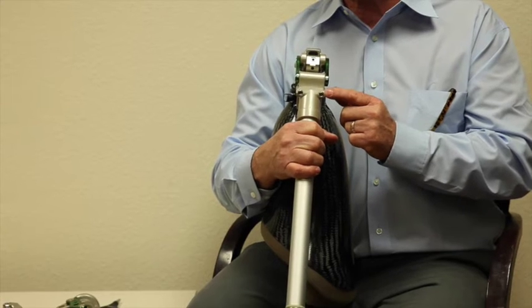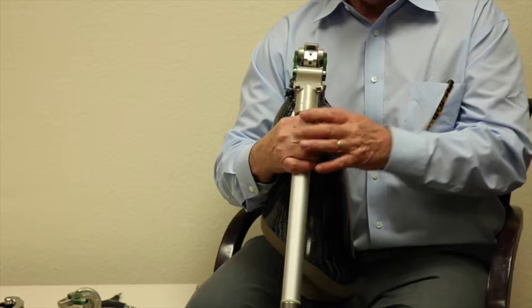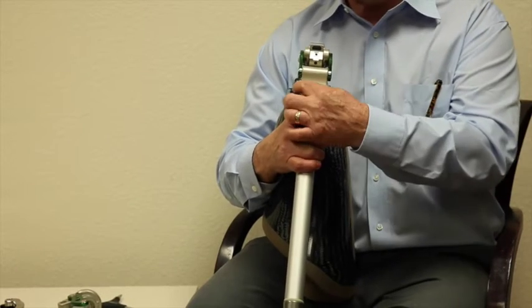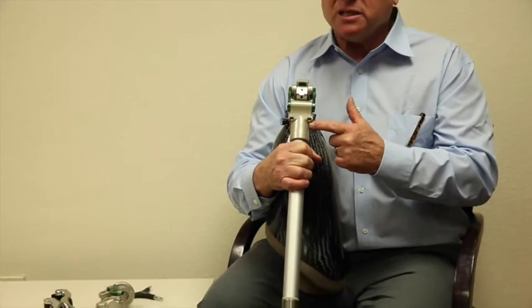What is vital is that you turn them exactly the same. If you turn one more than the other, you're going to get premature wear and you won't get the action you're looking for. So if you go an eighth of a turn, go an eighth of a turn on the other side. Keep track, stay focused, and adjust these equally.